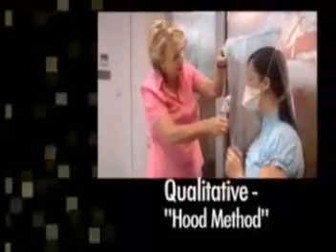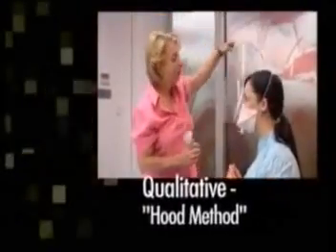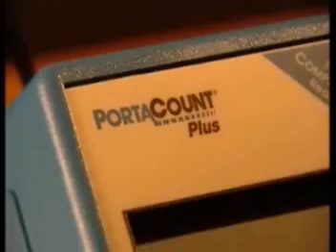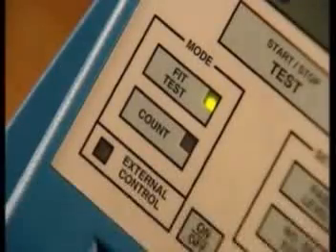Qualitative, often referred to as the hood method, and quantitative, for example as used by the PortaCount Plus with N95 companion instrument. When using either method, you should comply with Australian standards and the manufacturer's instructions.